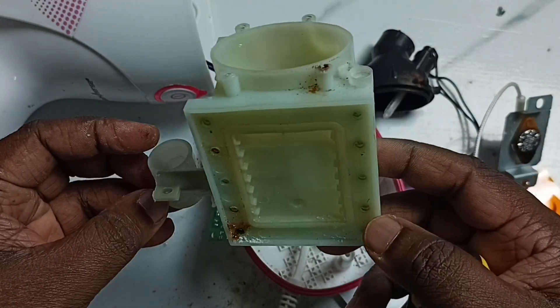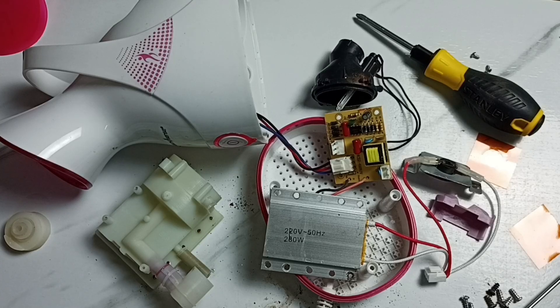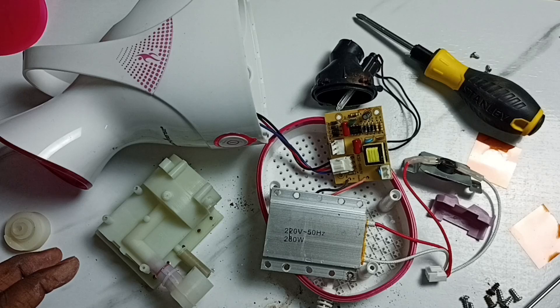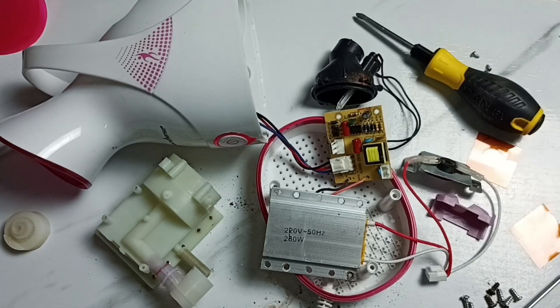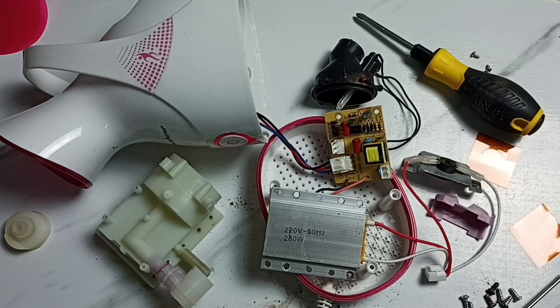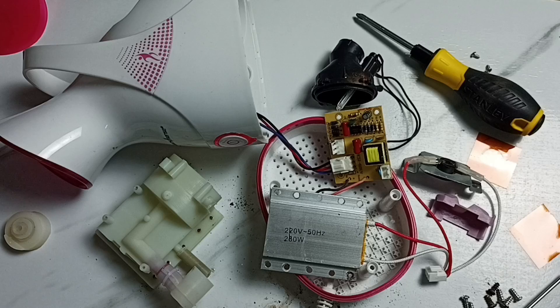So let me wash this. This way we can tear down the Healthsense vaporizer. Please check other videos in the playlist — there you would be able to find how to replace the thermal switch if auto cutoff or overheat protection is not working, how to fix a leak in the water tank, how to replace the heating element or heating plate if vapor is not coming or the device is not heating, how to replace the UV light, how to clean the inside filter, and how to fix a leak from the inside.